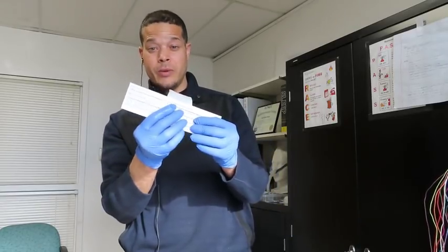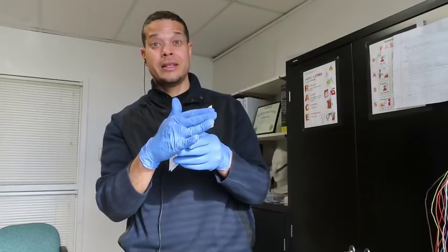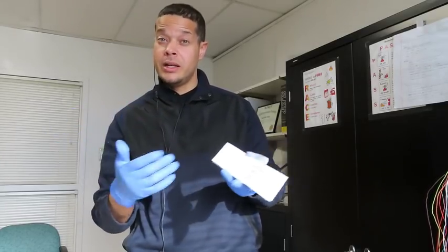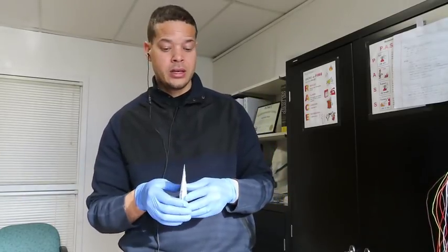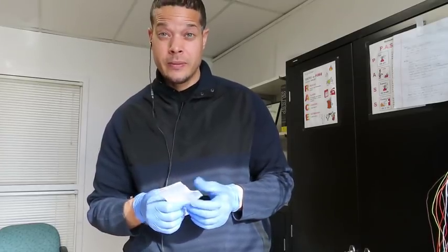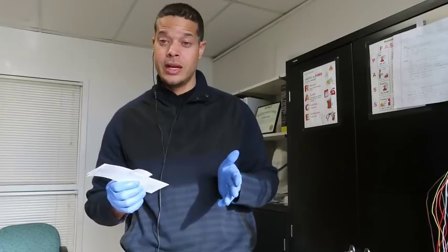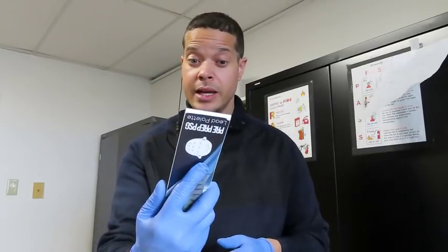Sometimes I've had it last for about 72 hours covering it with just even standard paper, but the paper I use makes it a little bit longer. But just in case, I'm recommending 24, 48 hours max to use the system that's in place. And pre-set it up, come in the night of your study, have everything all ready to go. Very easy, smooth night. So that's kind of what this is about, and hopefully some of you like it.